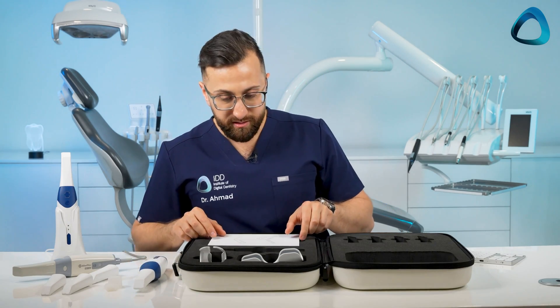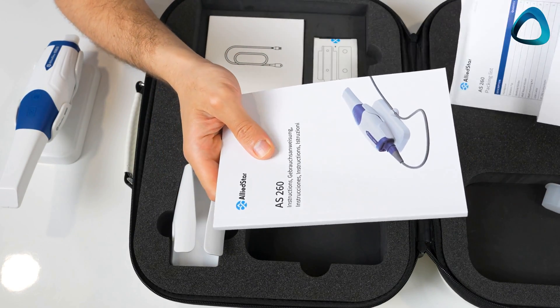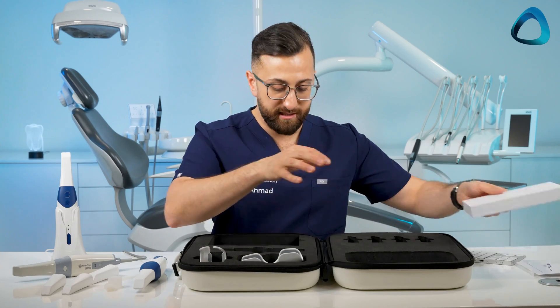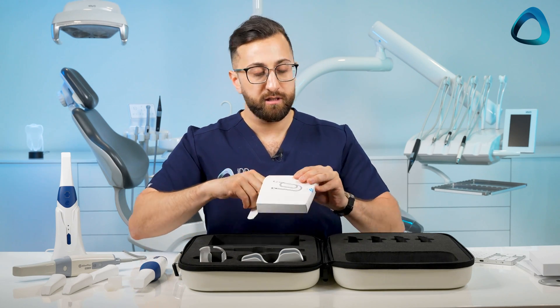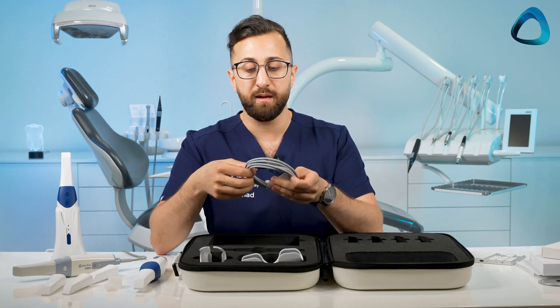There's a book of manuals covering everything from a packing list to a software guide. And the general presentation and packing of these products is quite a high standard now across the board. We also get the cable, which is sealed — a nice touch.